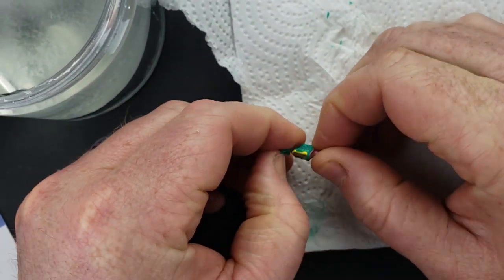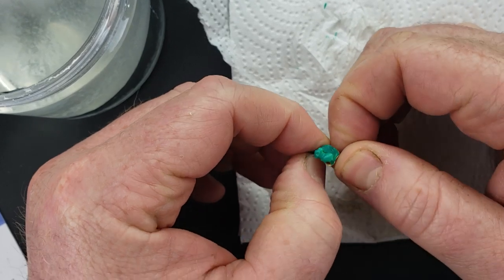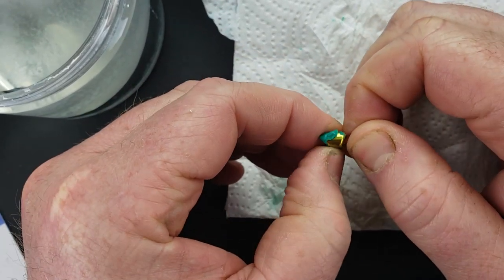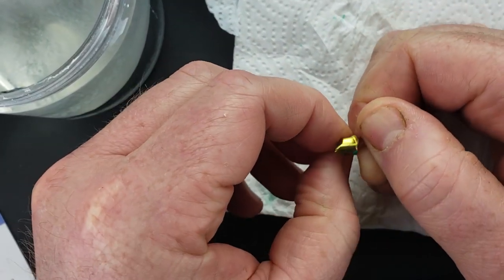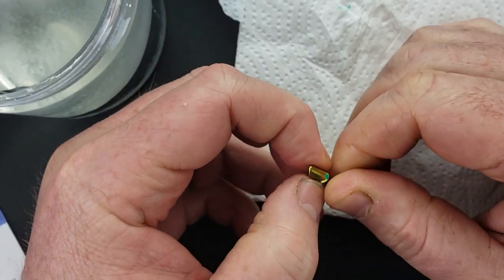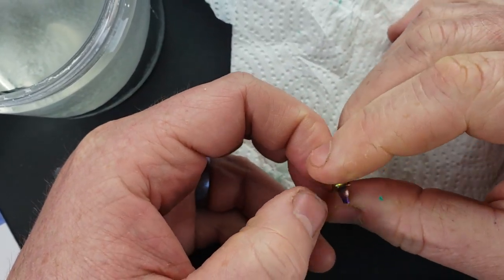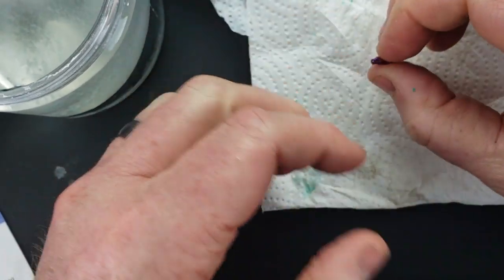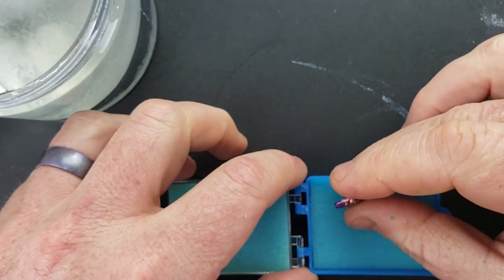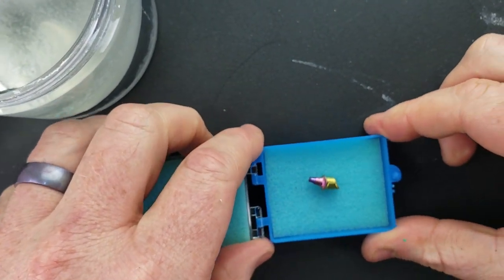Hopefully we can peel this stuff off pretty easily. Yeah, since I didn't cure it the full cure, it peels right off. And now you see this really nice two-tone abutment. That took very little time to accomplish.